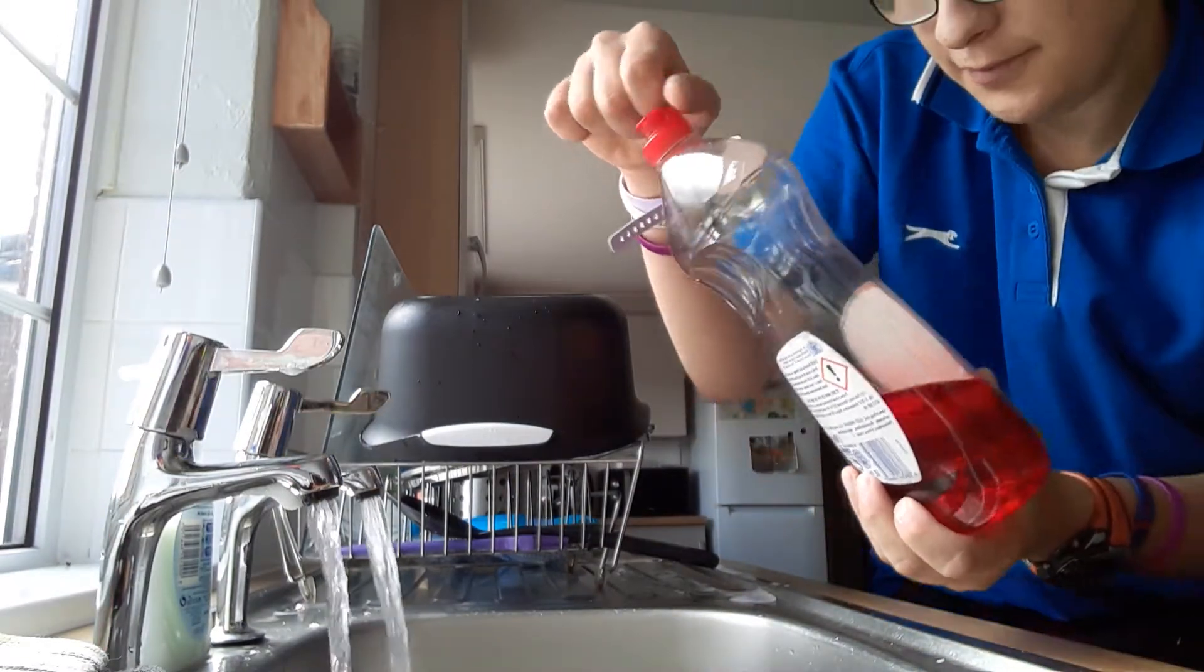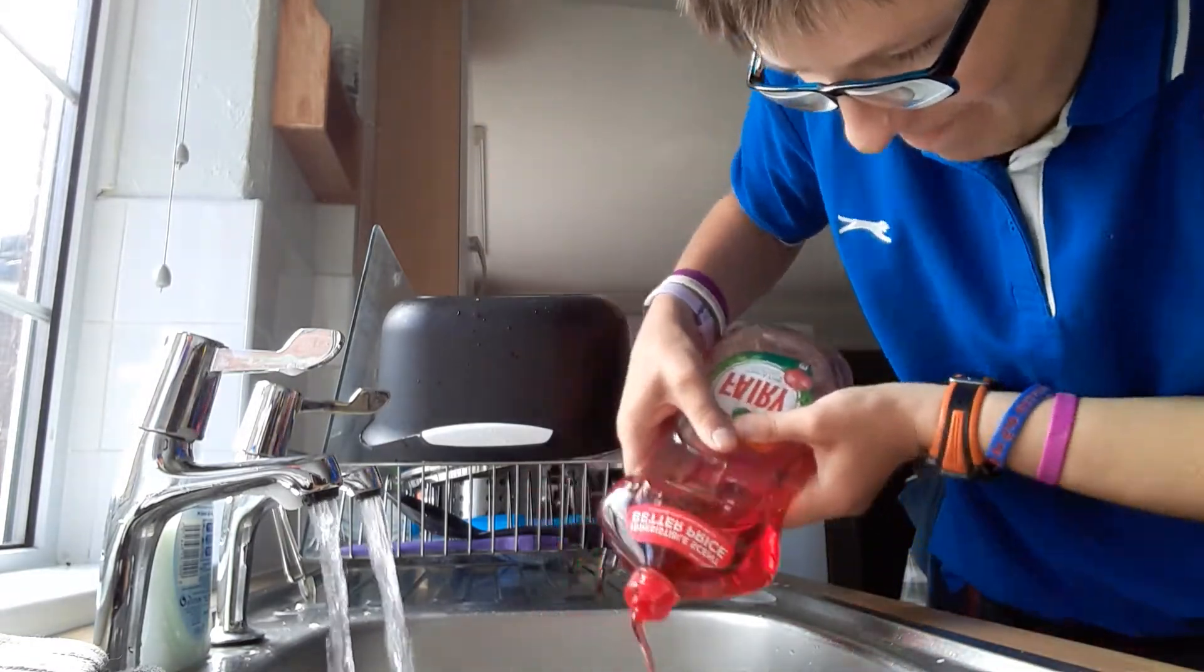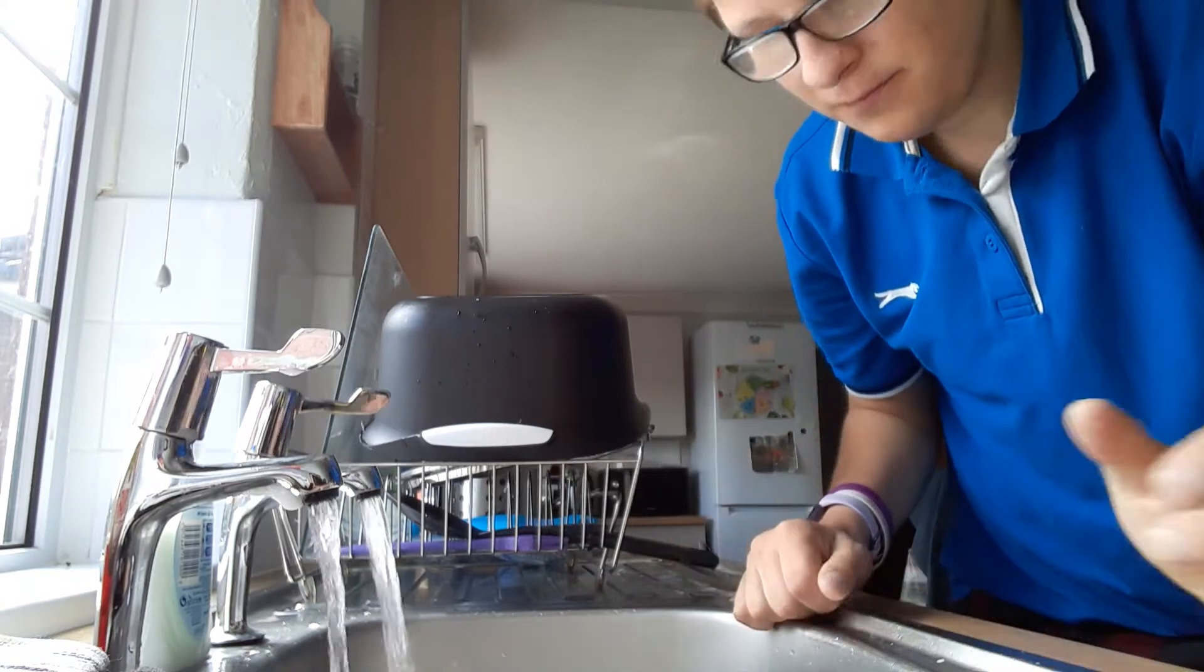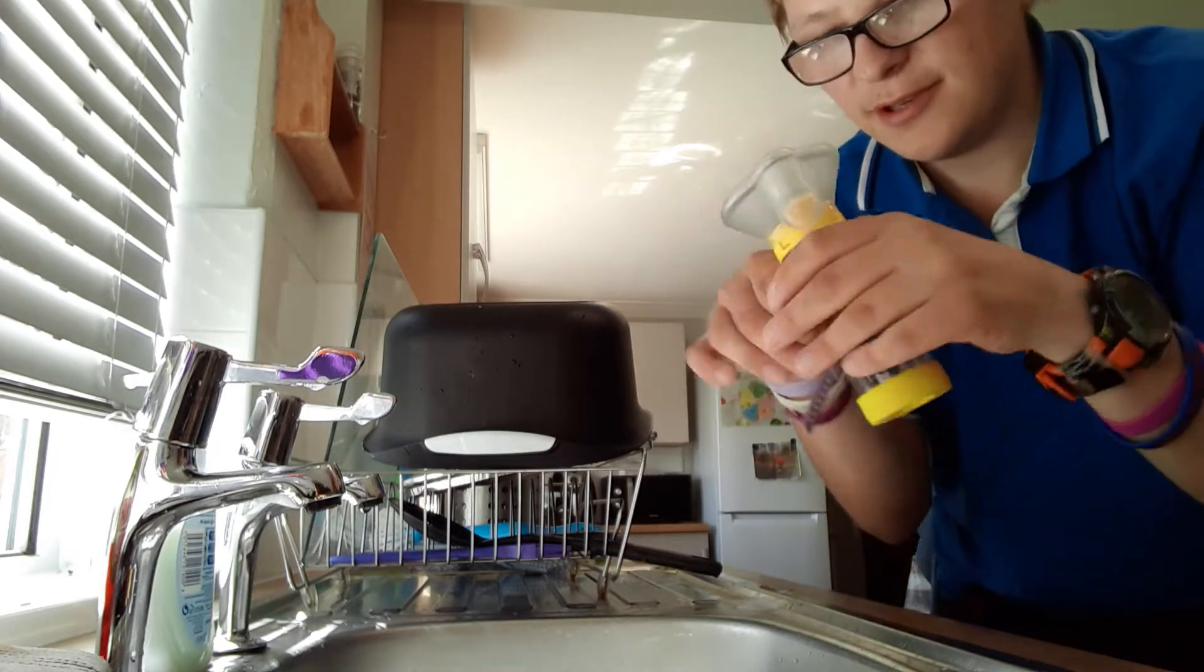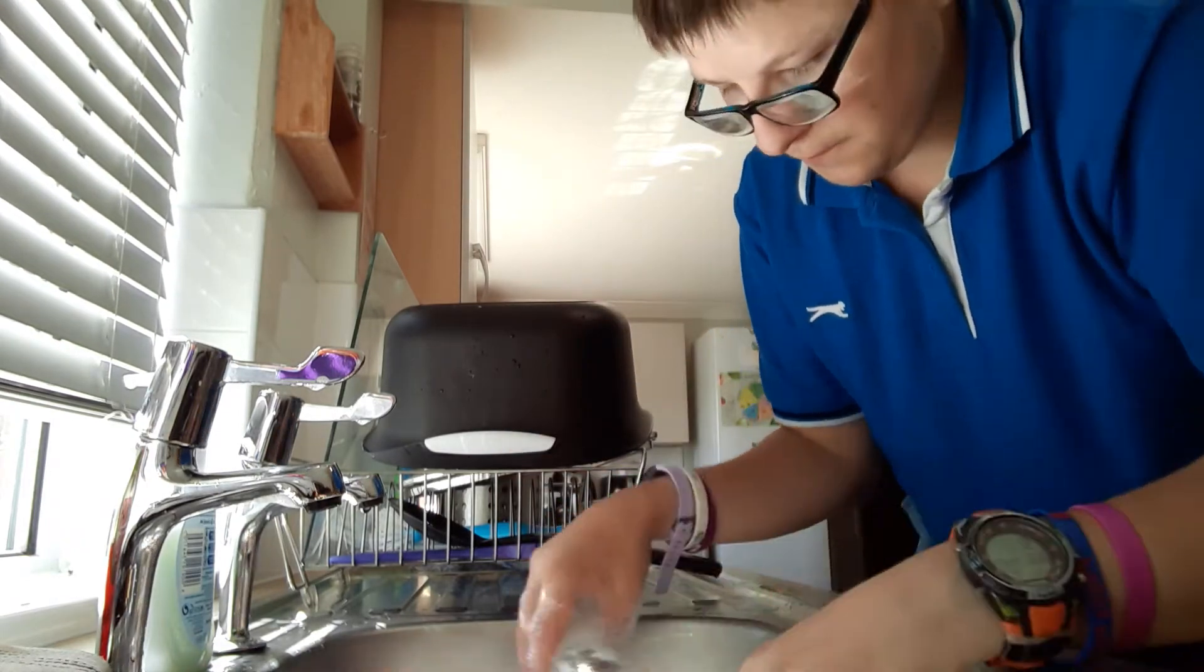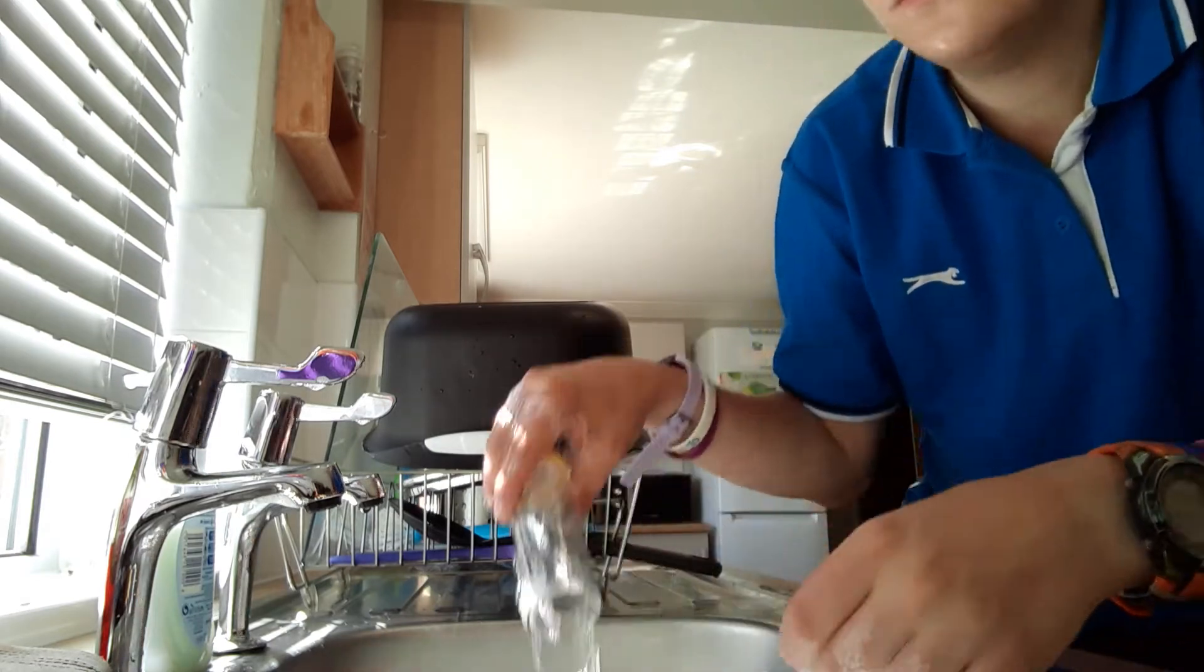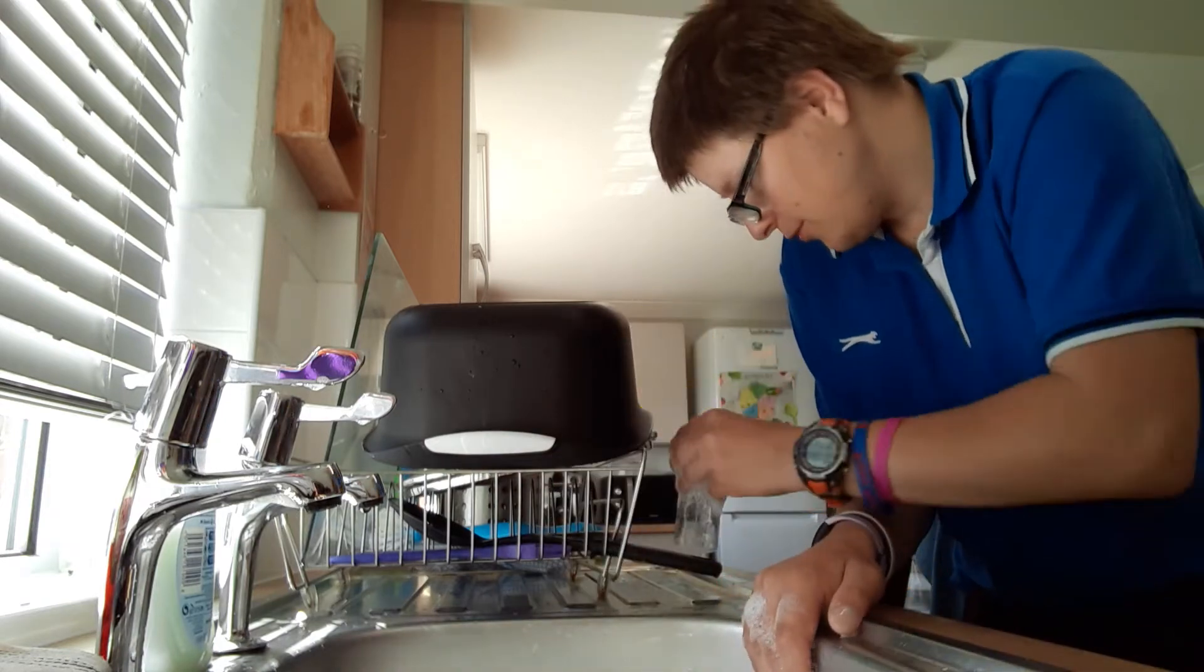I'm cleaning them with warm soapy water. I'm going to clean the spacer first. So you take the cover off the spacer and the back cover, and you rinse it in warm soapy water. Then you put it on the side.